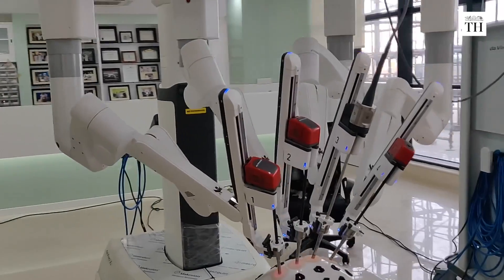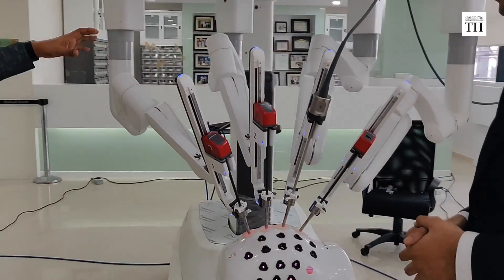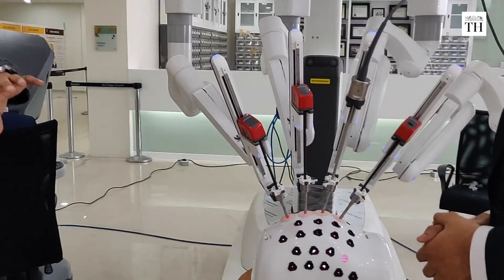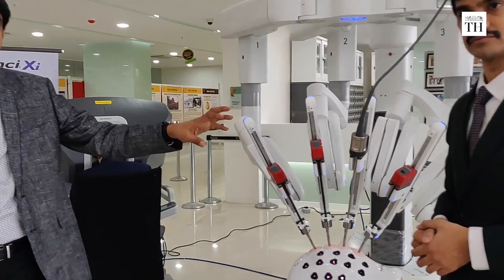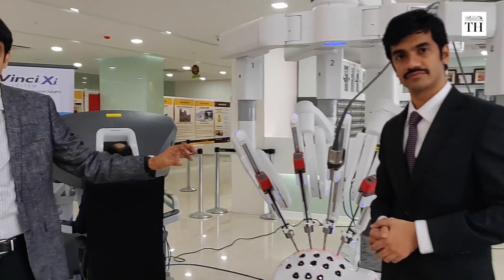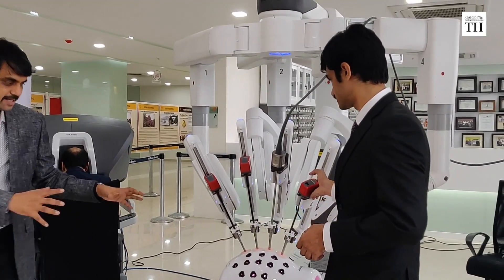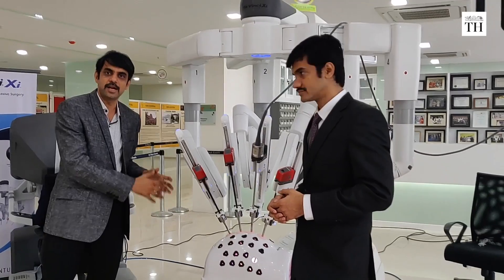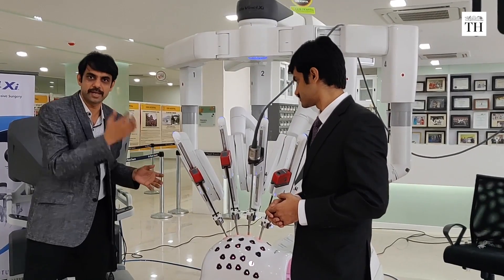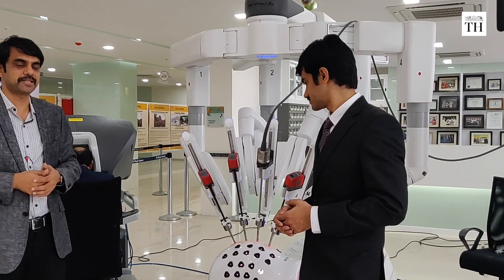This is called the patient cart. One surgeon will be positioned here — here you can see Dr. Stevenson is standing. Imagine this is the patient. He controls the patient cart and fine-tunes the patient cart.